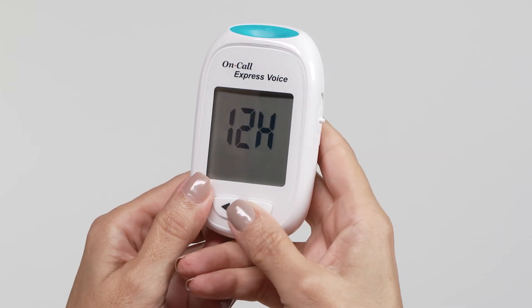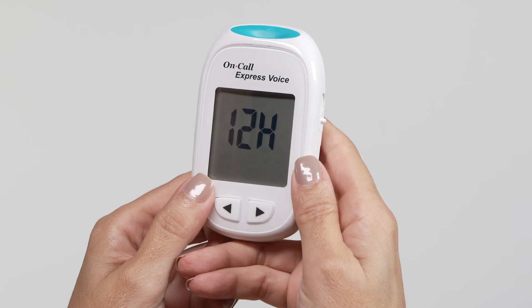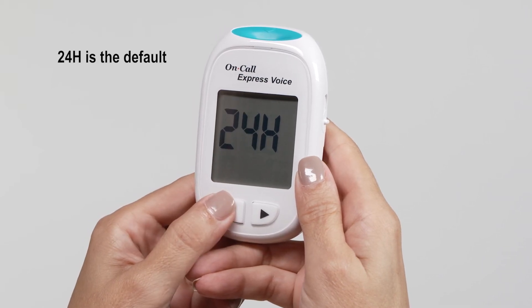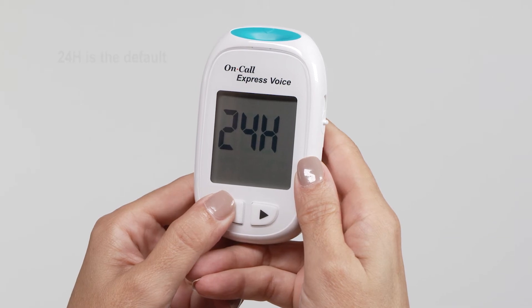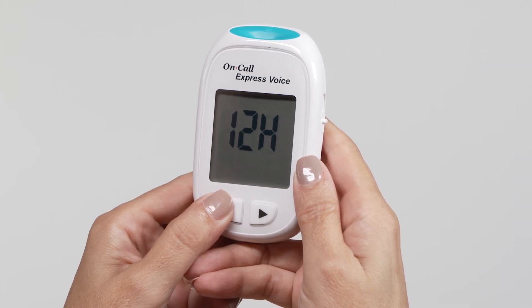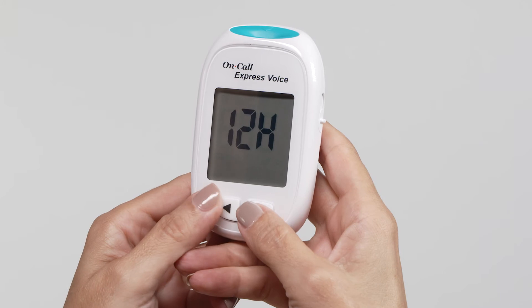Wait for the meter to say Setup while displaying 24H. If you want to choose 24-hour mode, press the right button to save your choice. If you want to choose 12-hour mode, press the left button to save your choice.